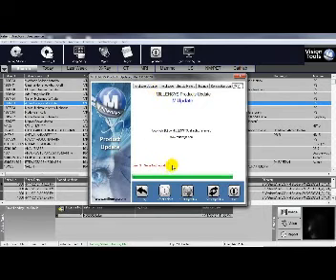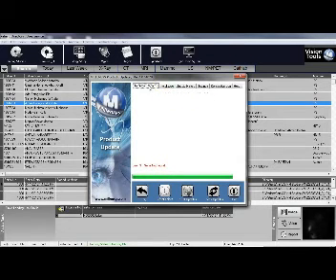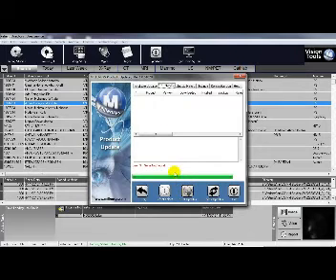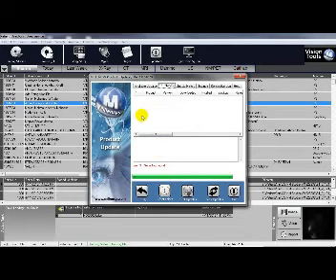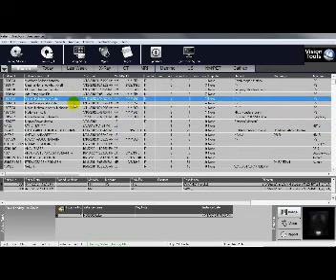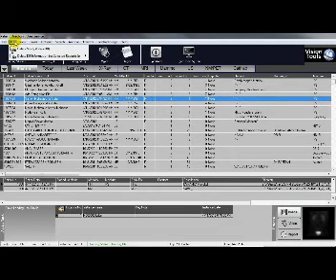For example, I just checked and my serial number was not found on the license web server. If the serial number is found, available updates will be shown for you to select and install. You can read the release notes, click Update to proceed, or skip and exit if you don't want to update.